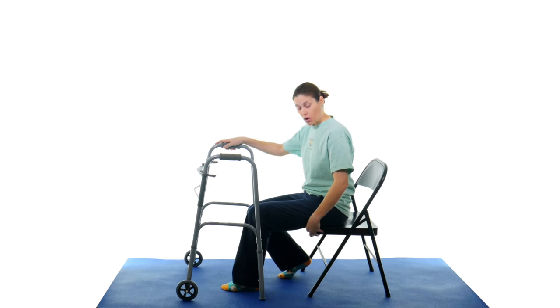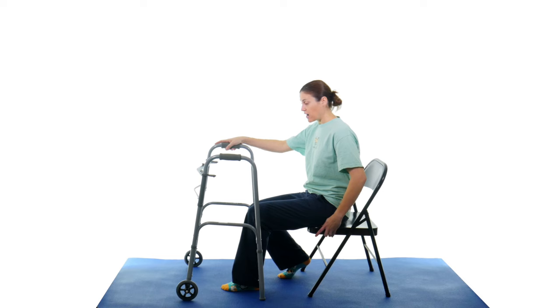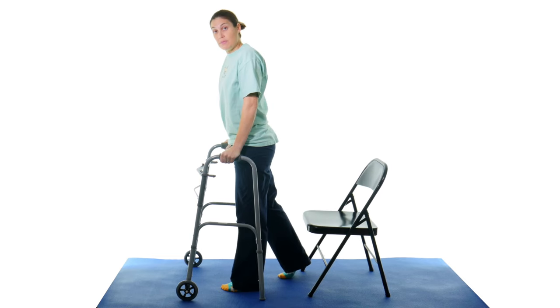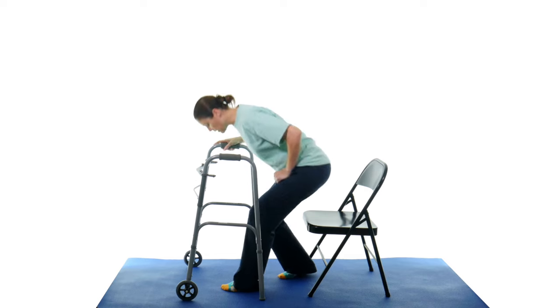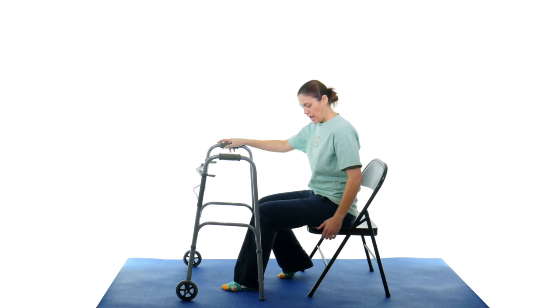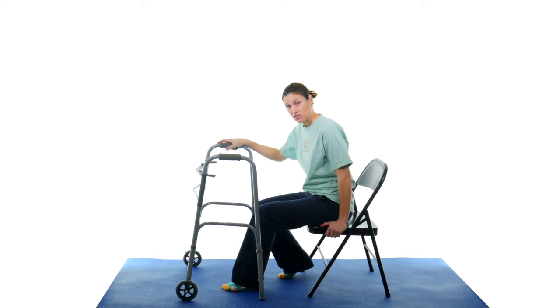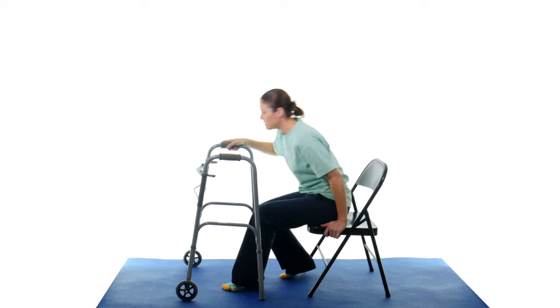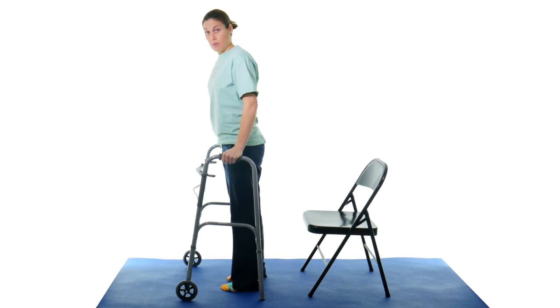putting that foot back, one hand on the walker, one hand on the chair, and then I'm going to push up and as soon as I get up then I put my other hand on the walker. So see I'm keeping my hand here for that stability, keeping it there, and then I'm pushing up where there's something sturdy. So that's the goal. You're pushing up here and you're using that stronger leg slightly behind you to get that push as you come up.